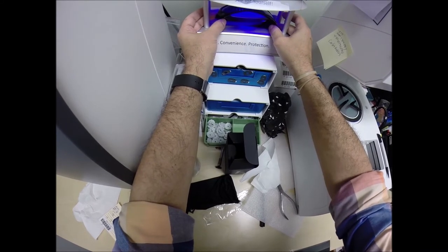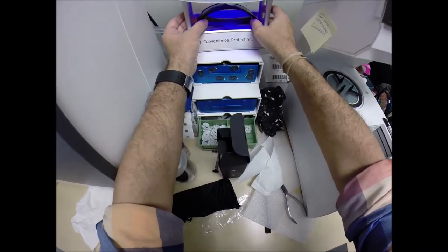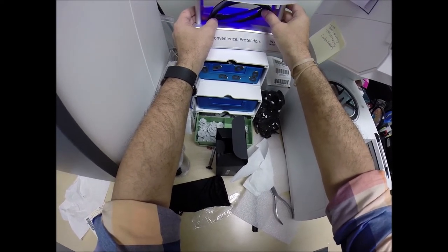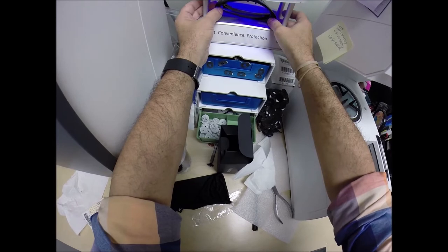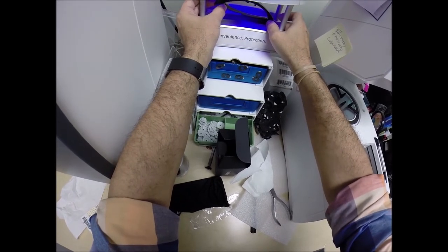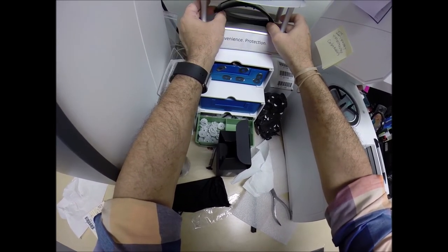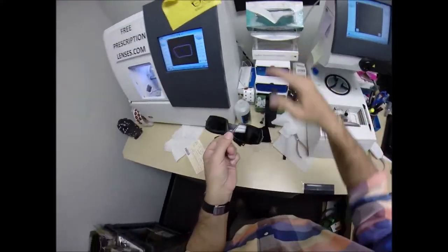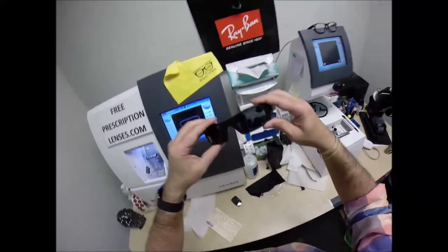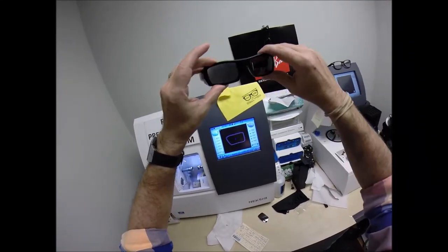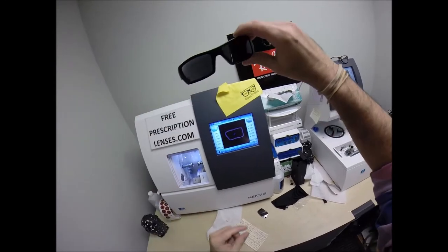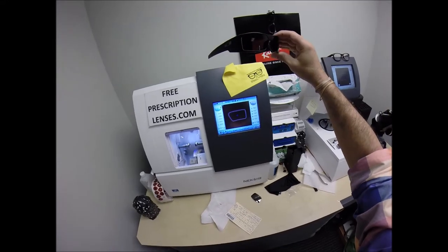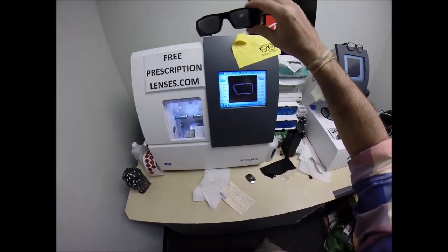All transition lenses will get dark on day one and continues to darken every day for the first two weeks they're exposed. After that, they'll work for years at maximum performance. They won't work behind the windshield of a car. Your windshield absorbs all the sun's harmful ultraviolet rays. They're temperature sensitive, meaning they will get darker when it's 85 and below than when it's 95 and above. Nobody works 100% when it's 100 degrees outside. I'm rotating it to try and evenly get the lenses dark because of the wrap.